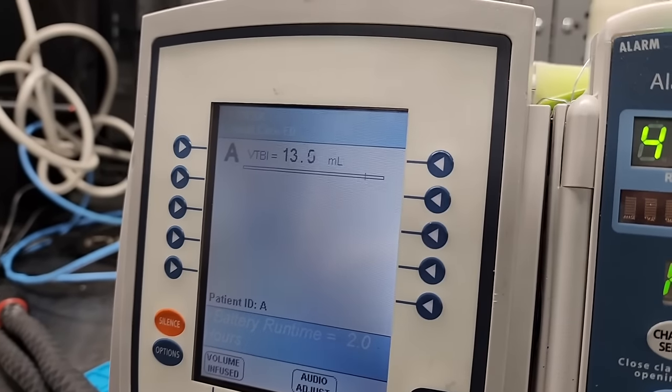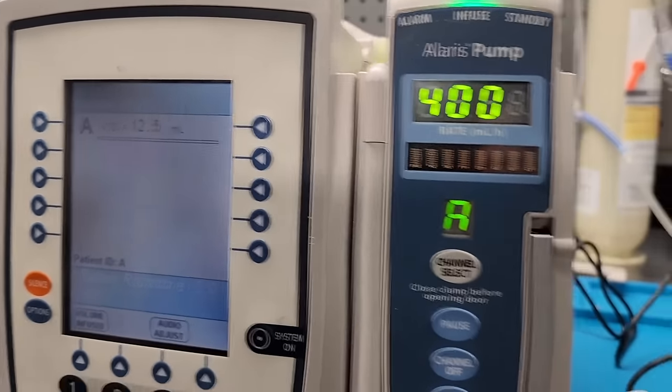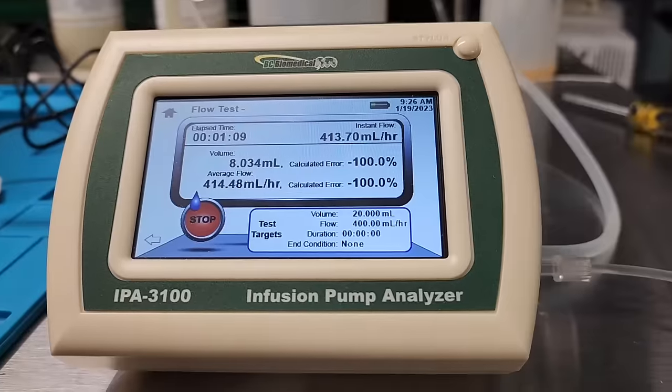Okay, so let's see, volume to be infused, I'm at 12.5. Man, look at that.